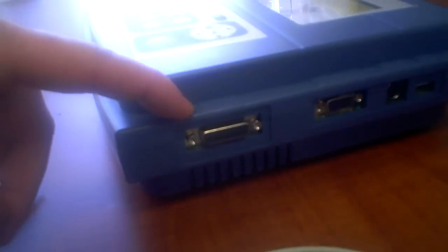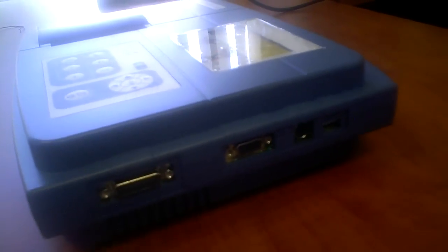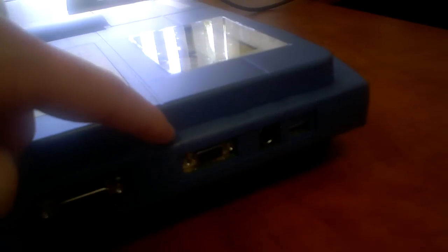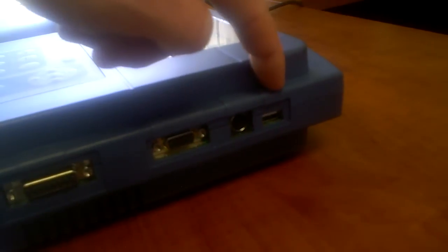It has a backup battery power supply. There's a serial hookup here, which is where the lead cables will go in. Data transformation can occur here through a serial port, as well as USB.